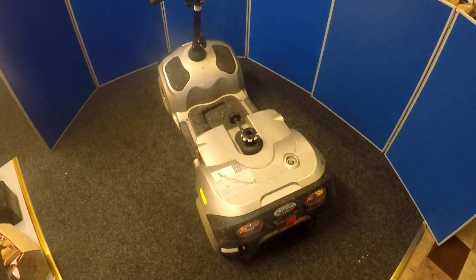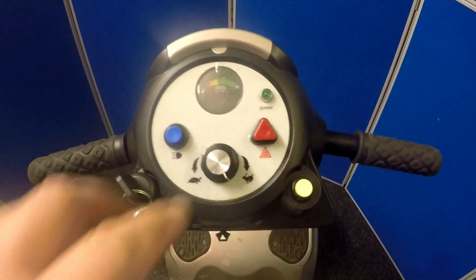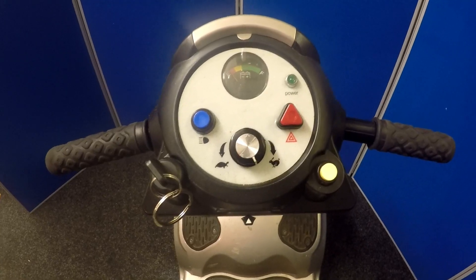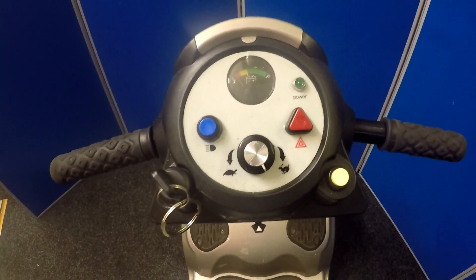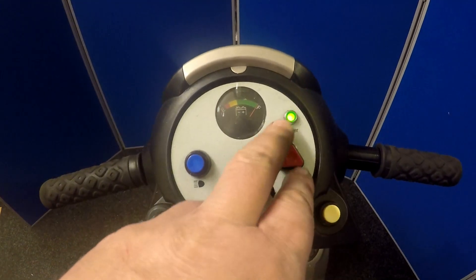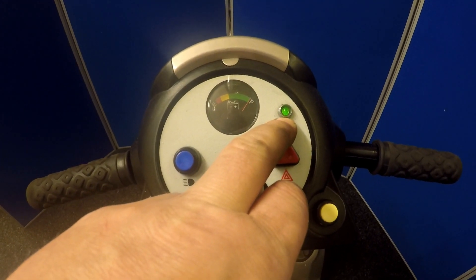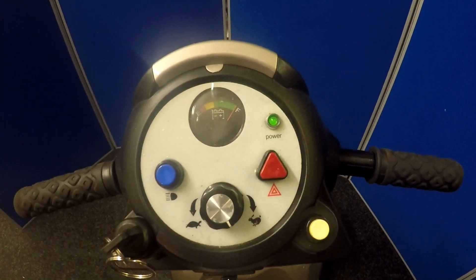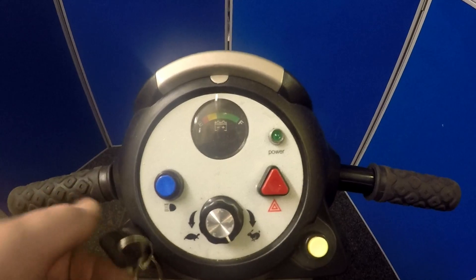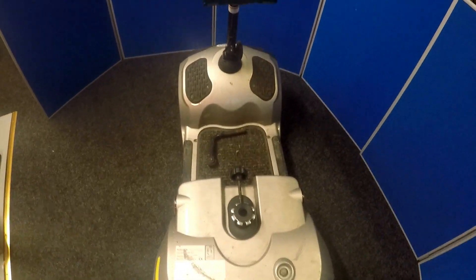This scooter came in today — it's a Neo6 scooter fitted with a status light. I've checked it and it's giving five flashes. The diagnostic sheet says electromagnetic brake. To show you: switch the key on, it starts to flash, you wait for a gap and count — one, two, three, four, five. It has five flashes, then a gap, then five flashes again, and it does that constantly.